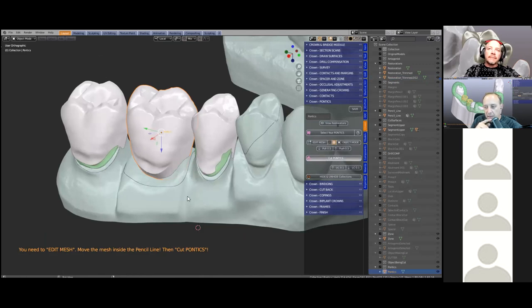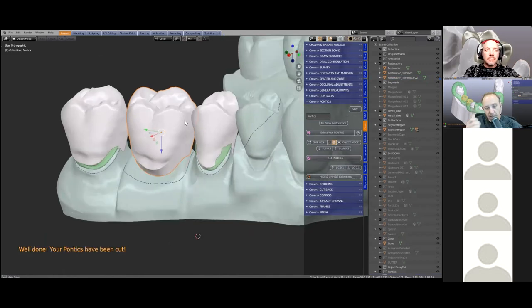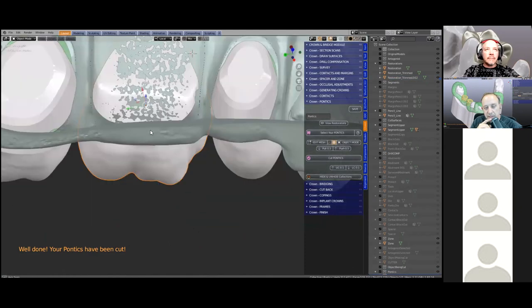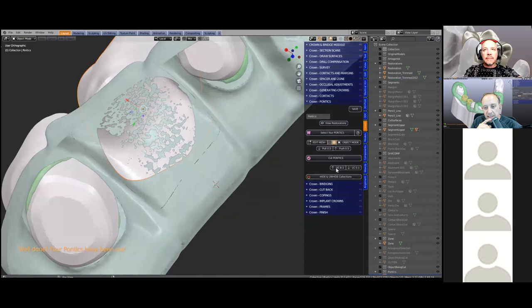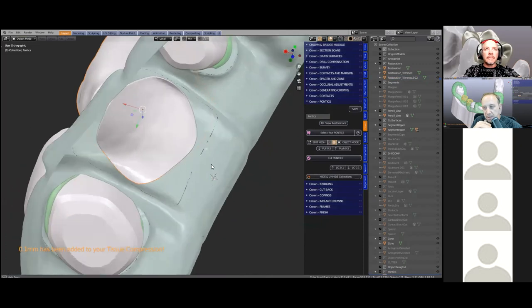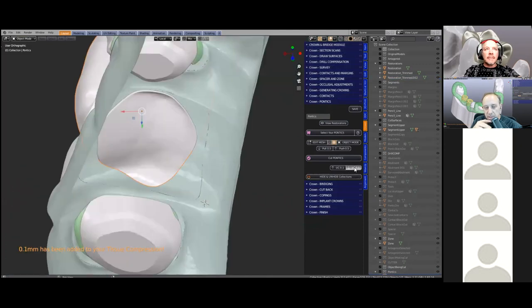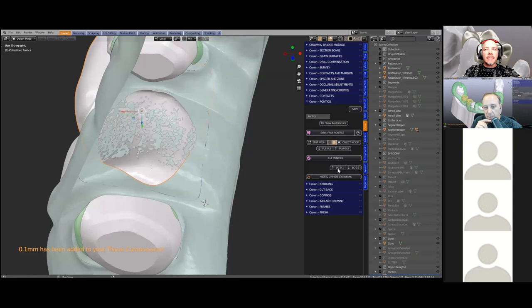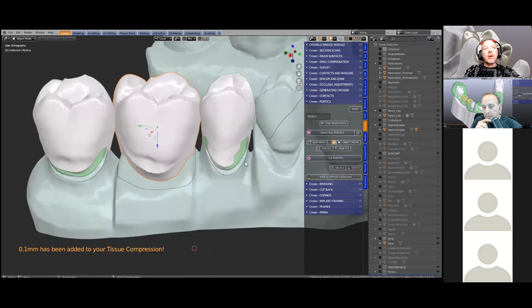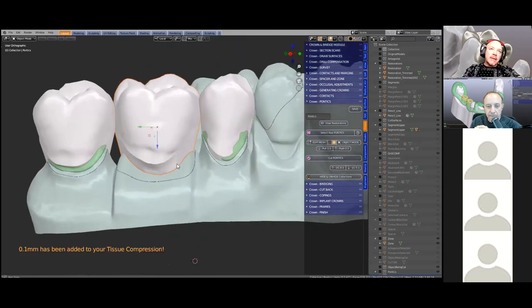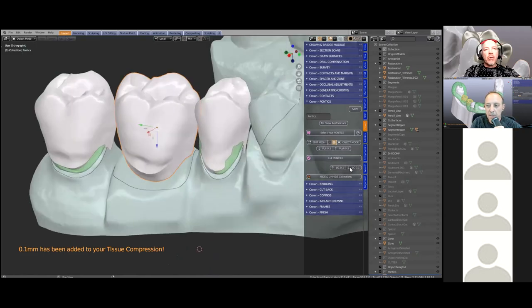The outline he made earlier will be used as a cutting tool to trim back the tooth library tooth back to the gum level. If you look from underneath, it's trimmed and you can pull it in or out. If you wanted the gum to blanch or press lightly into the mucosa, you can do that using those arrows. Each arrow press is 0.1 millimeters, so we know it compresses the tissue by 0.1 each time.